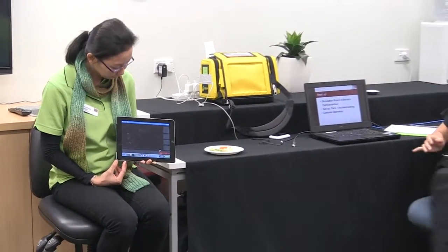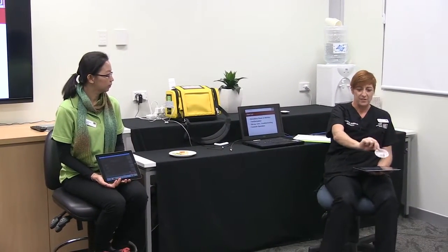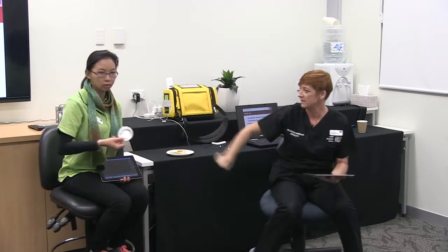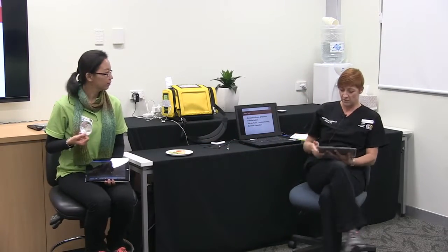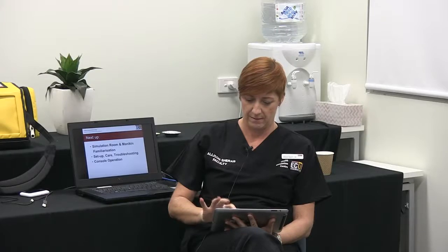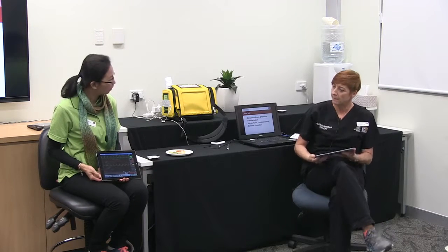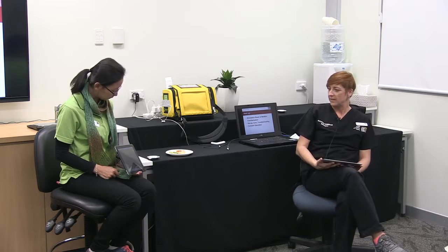You can use this anywhere — even if you've got 10 minutes in the tea room with your student, you can just do a very quick talk-through about one of your patients. So Holly, this is Mary's sputum when she was admitted — as you can see, it's just nice and clear. Can you just do a quick set of obs on Mary for me, please? And as you can see, all those are within normal parameters.